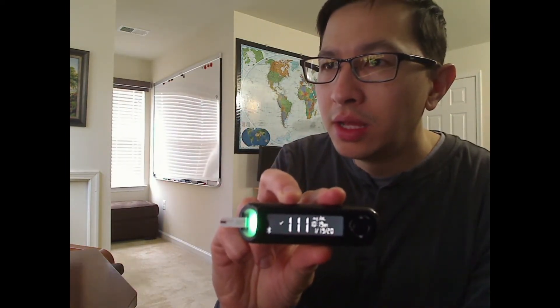Let me test. I have a lancing device, the pricker, and a test strip inserted into the glucometer. And I prick myself. Now let me put some blood onto the test strip. Got it. It reads it — 111. There's a green light, checkmark. We're good.